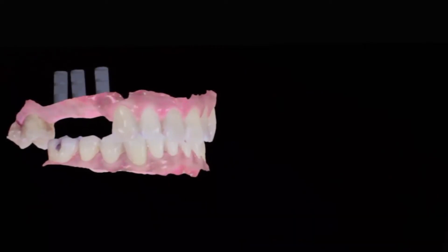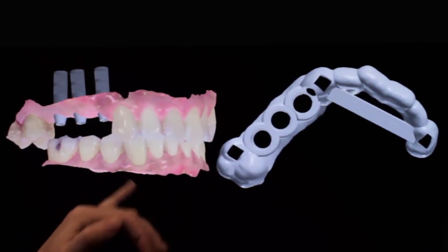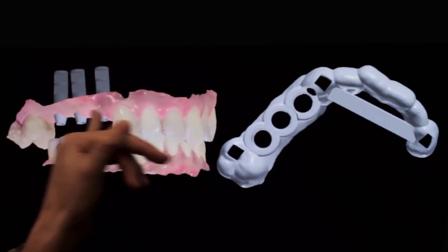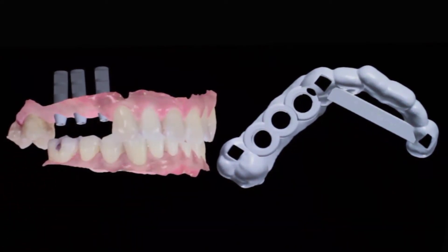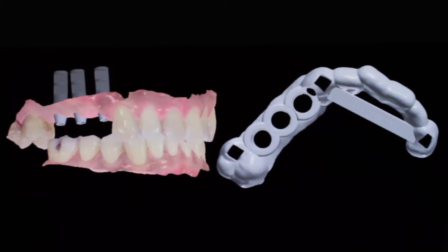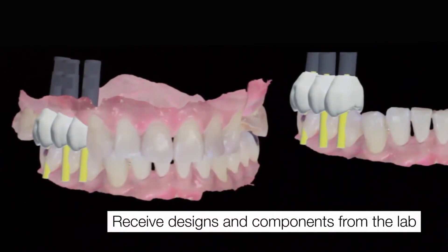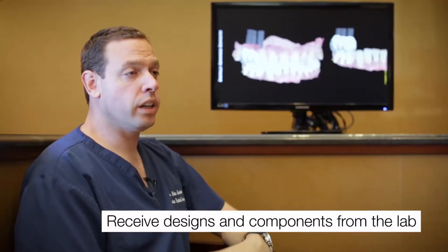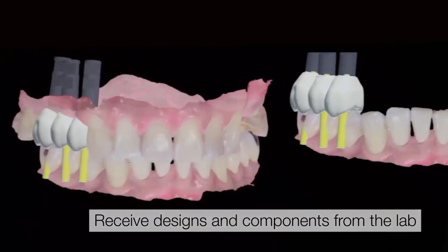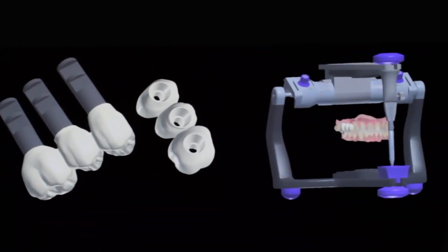The major advantage is that with these different data sets — the patient's upper jaw, the patient's lower jaw, the virtual implant position prior to surgery, and the restorative components we want to use — all of that comes together so that prior to finishing the virtual plan, we can go ahead and design a screw-retained provisional of the precision of where the implants will end up, giving us a very nice way of immediately providing a restoration for this patient.